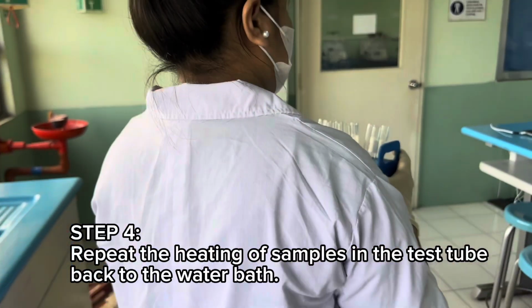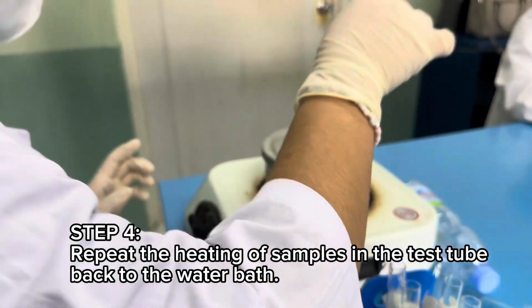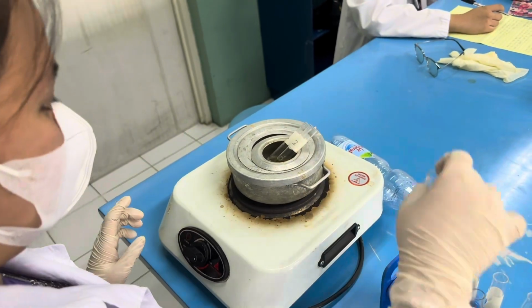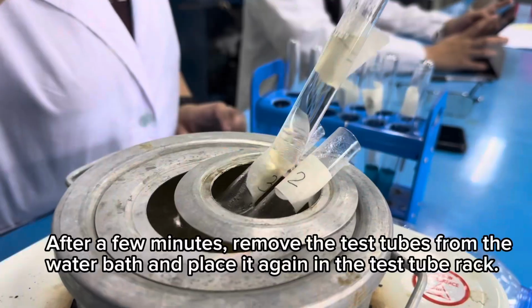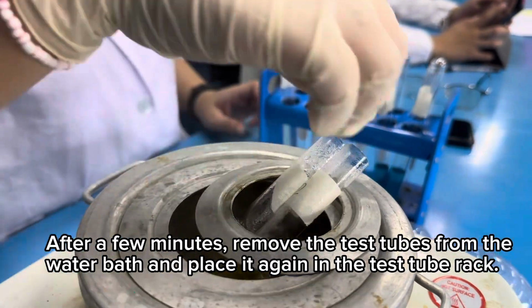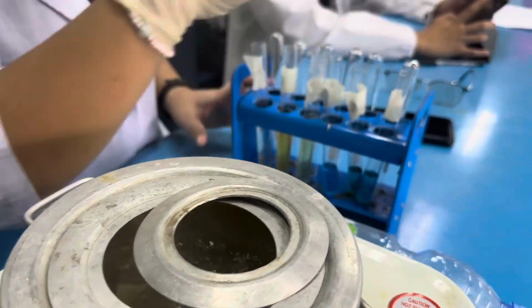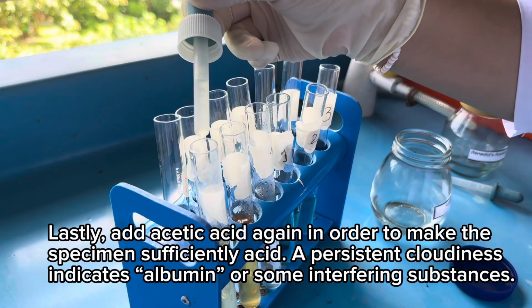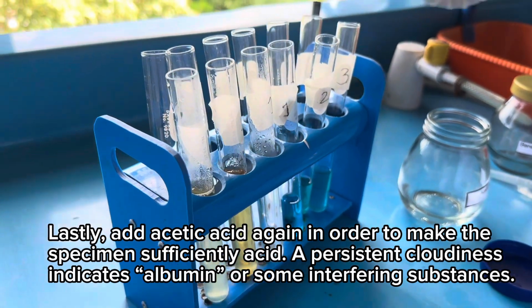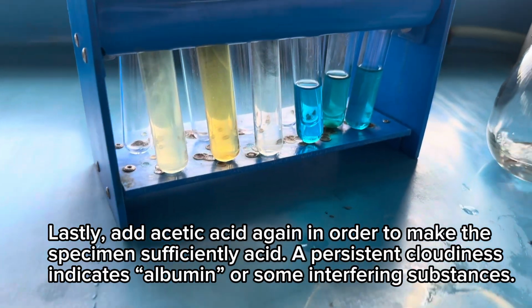Step 4. Repeat the heating of samples in the test tube back to the water bath. After a few minutes, remove the test tubes from the water bath, and place it again in the test tube rack. Lastly, add acetic acid again in order to make the specimen sufficiently acid. A persistent cloudiness indicates albumin or some interfering substances.